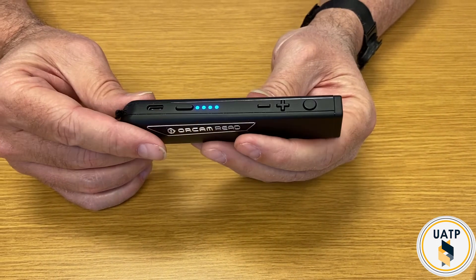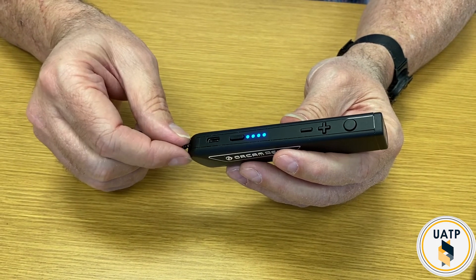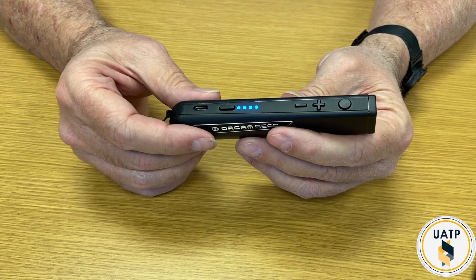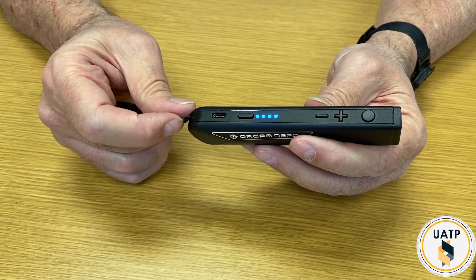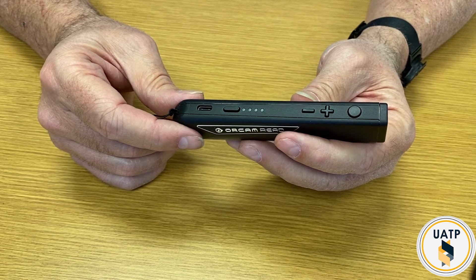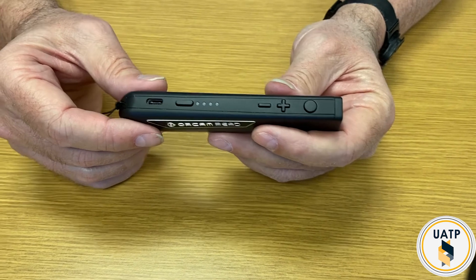One thing available here that I really can't demonstrate, but it's part of what they sell this product for: people who are dyslexic or have a cognitive disability sometimes like this. It has a laser pointer in it — I've got it turned off now, but if it's on and you can see, you can point it to a paragraph on a page, click it, and it'll just read that little spot right there. That's a feature designed for dyslexic or other people with reading disabilities.